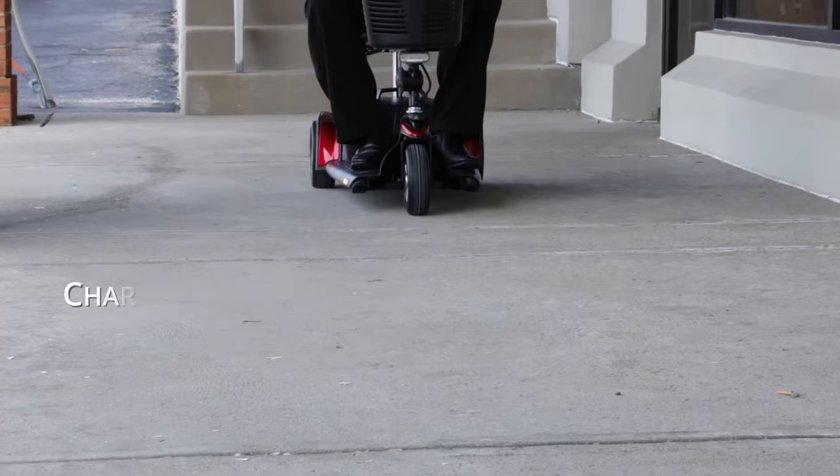That's just going to maintain the cells in your battery. If you just park it and let it sit and you don't use it and you don't charge it, then like any other battery, it will slowly lose its charge.